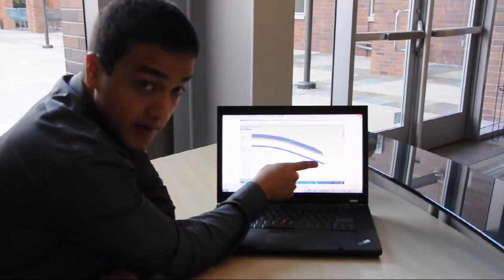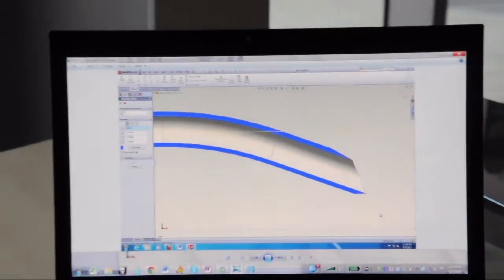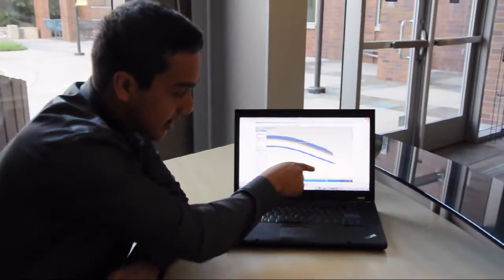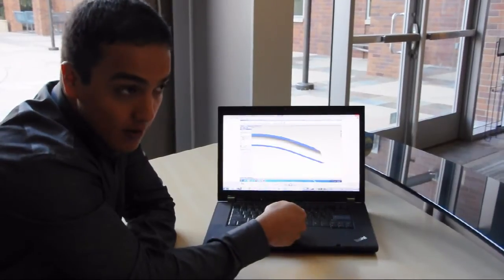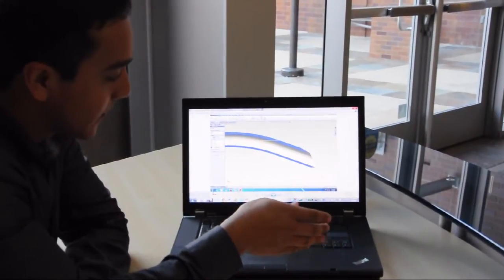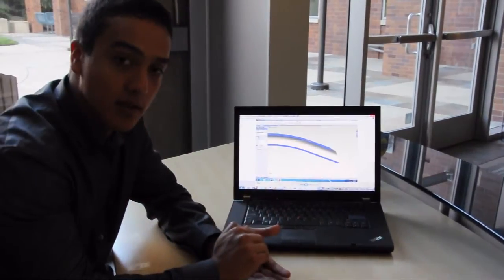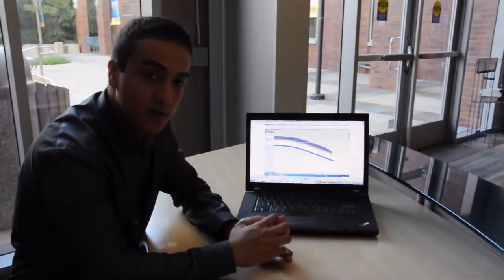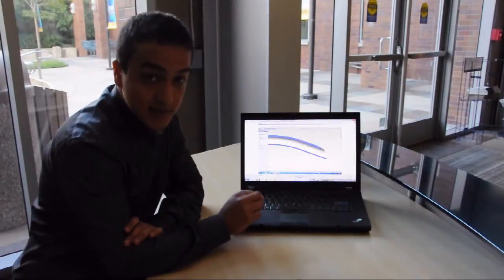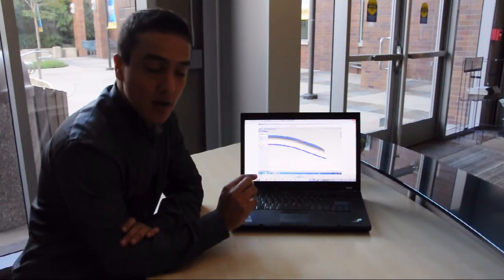As you can see in the image of our prototype, we have a bevel angle of about 30 degrees and also tapered outer walls into the inner walls. The idea behind the bevel is that there is a sharper leading cutting edge coming into the cataract, making it much easier to sculpt or to remove material. The other benefit of having a bevel angle is that it increases the area contacting the cataract, therefore producing a higher suction force. With this design, we are able to obtain a greater cutting efficiency as well as a greater suction force.